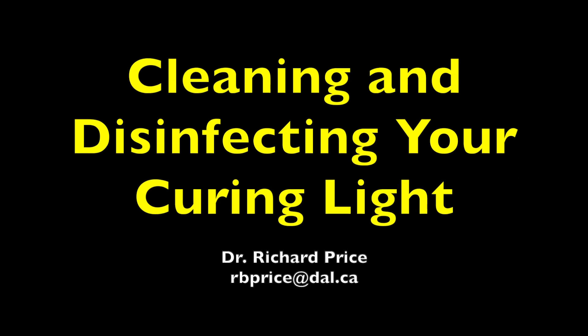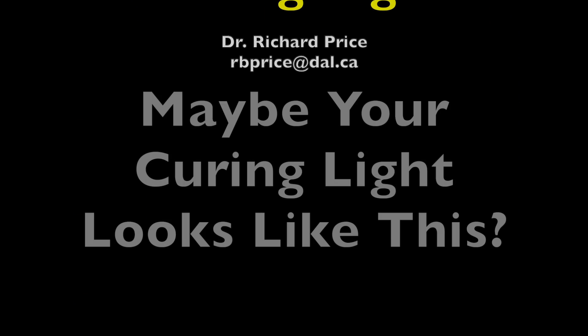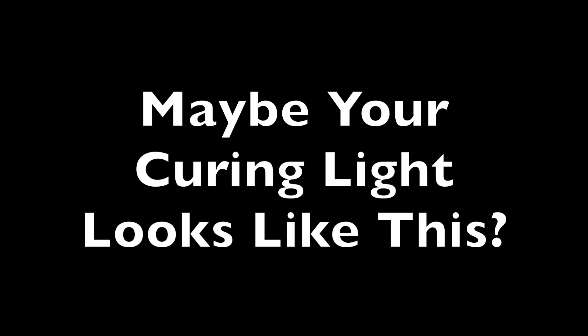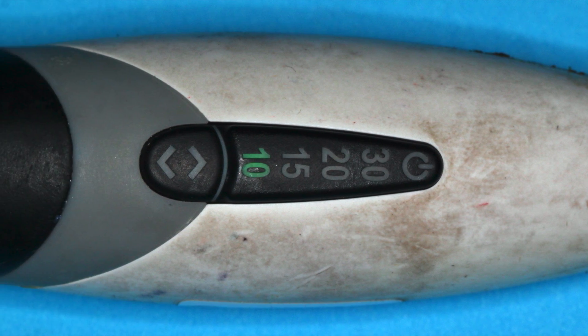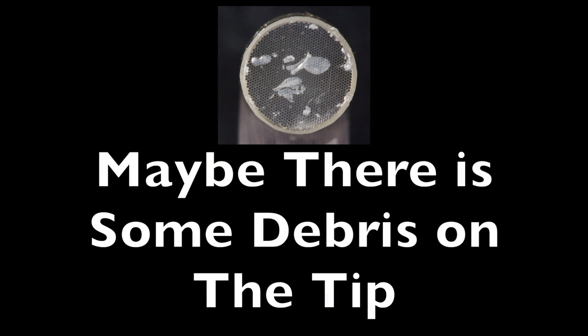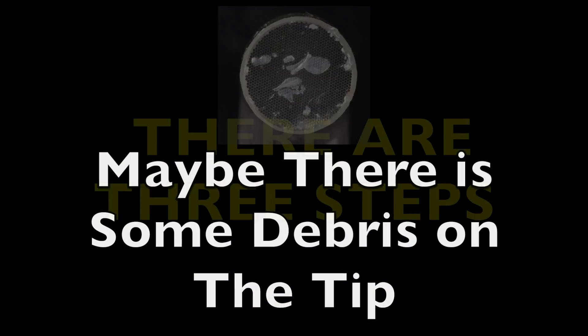This is Richard Price and I'm going to show you how to clean your curing light so it's ready for use on a patient. Maybe your curing light looks a little bit like this. Maybe there's some debris on the tip. This can easily be removed.